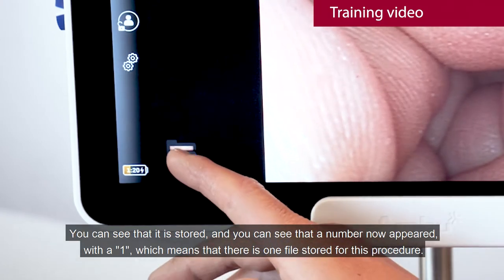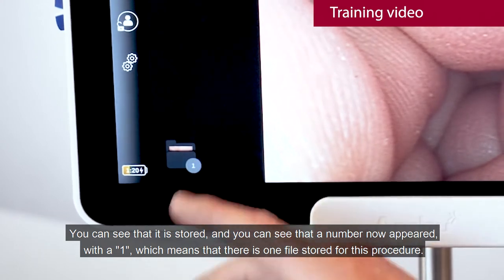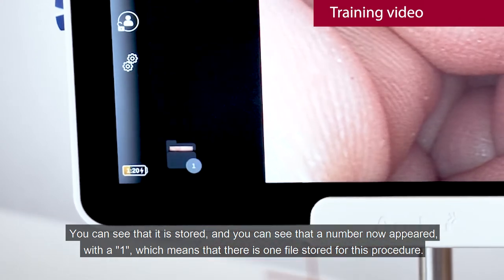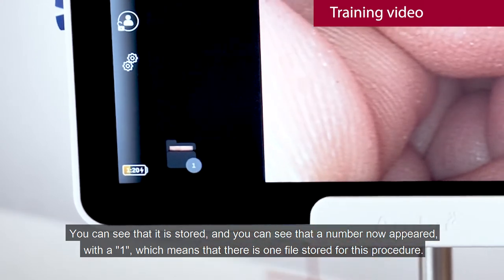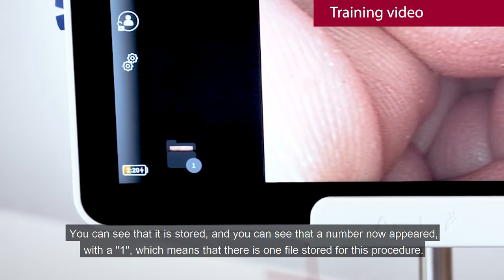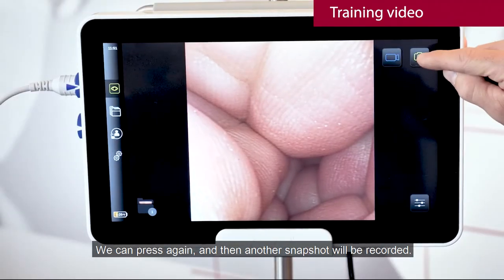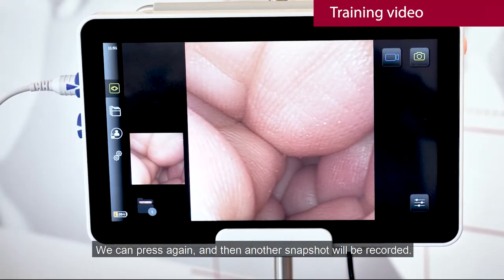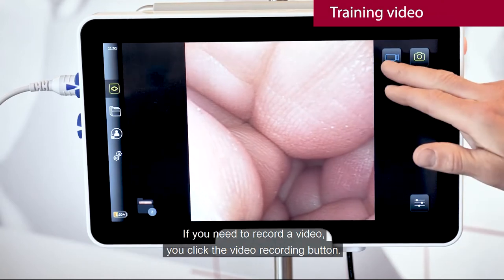You can see that it's stored and you can see a number now appeared with one, which means that there is one file stored for this procedure. We can press again and then another snapshot will be recorded.